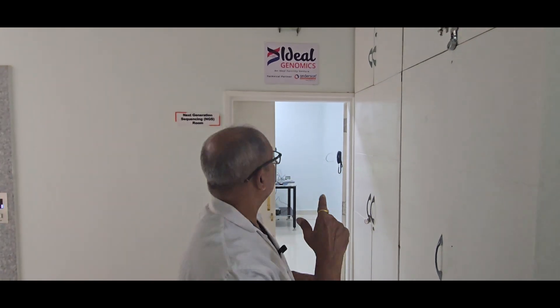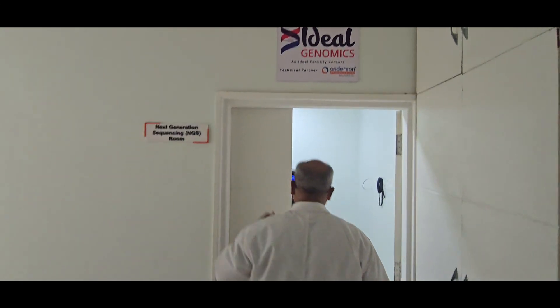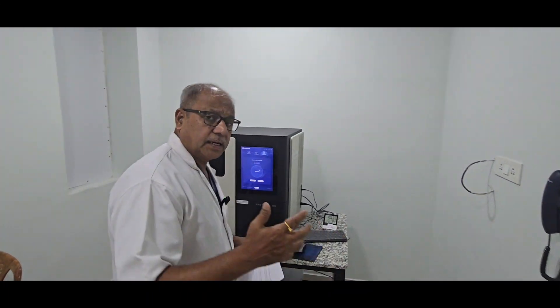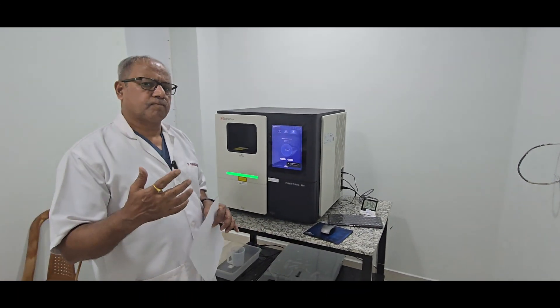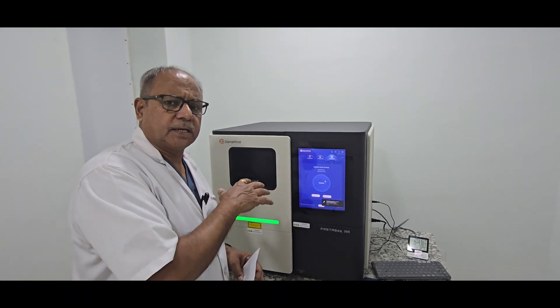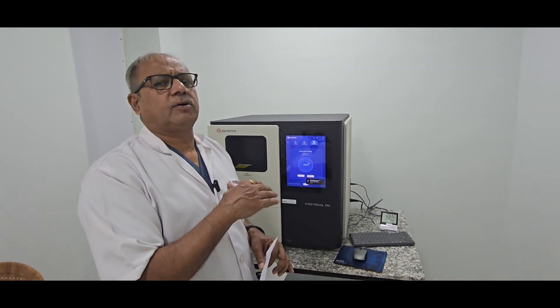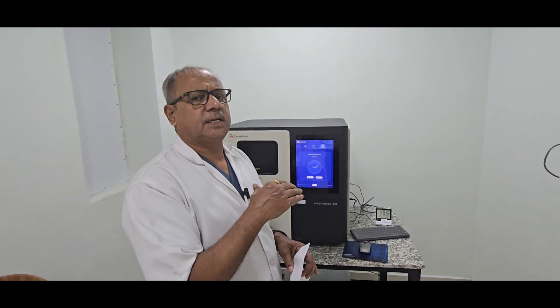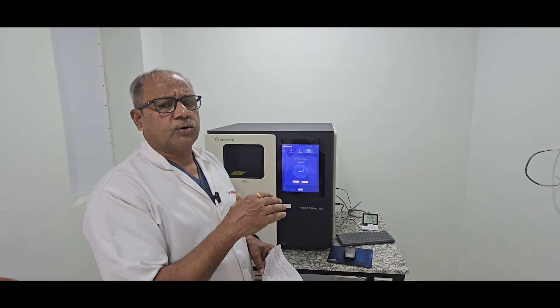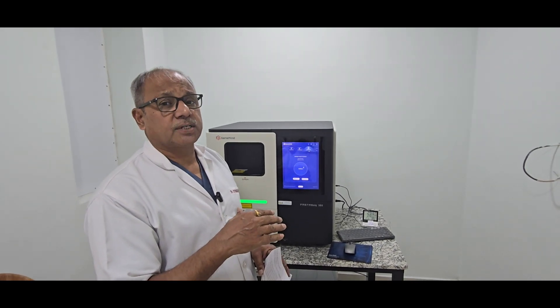This is the area where next generation sequencing takes place, and whatever DNA library preparation has been done over there feeds into here. This is the area where DNA sequencing is used for next generation sequencing — for non-invasive prenatal test, PGT-M, PGT-A, exome sequencing, whole genome sequencing, disease diagnosis, and mutation identification.